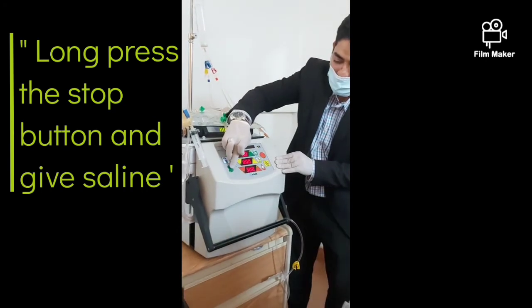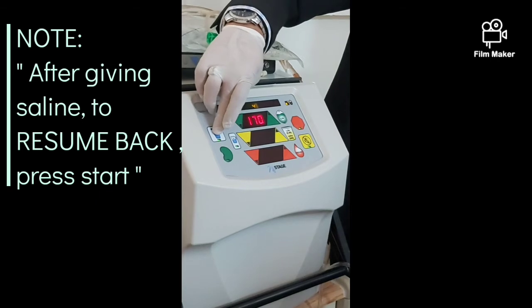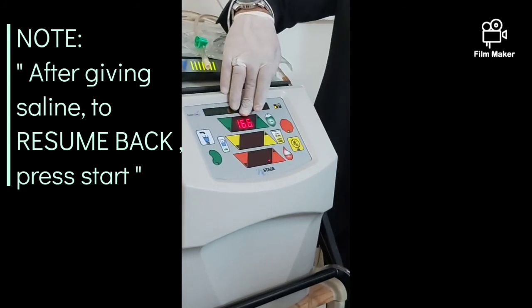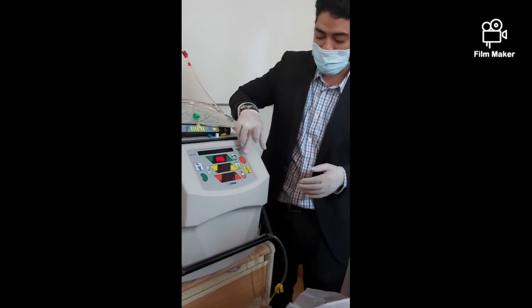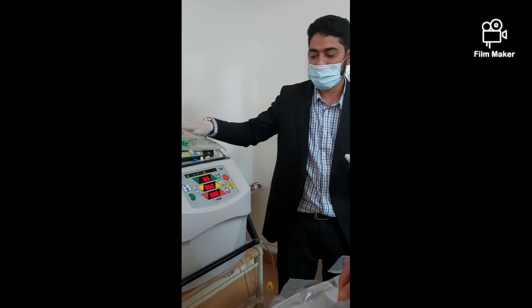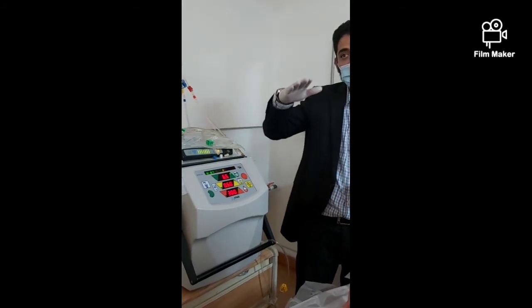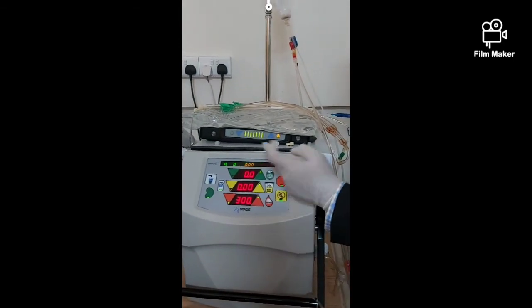How to give saline: still continue this one — continue until all saline finishes. If all 177 ml finishes and you want to add extra, press again. When the doctor tells you to resume treatment, long press — you will see the resume option appear. Press it and all treatment parameters resume back. You can also see how much dialysate was used, how many hours, and the average — you can use up to 18 liters per hour. At the junction screen, you can choose: resume back, go to termination, or other options.